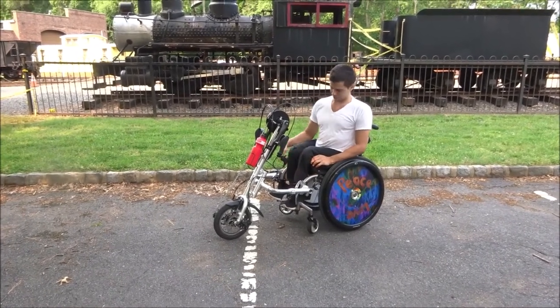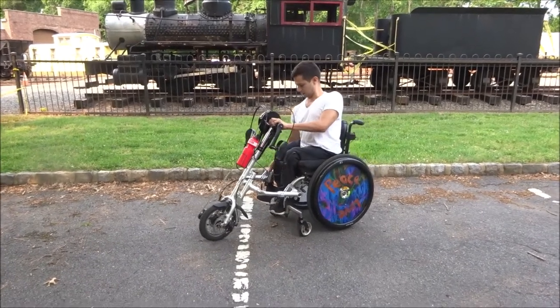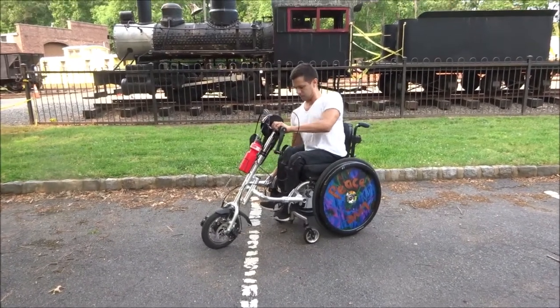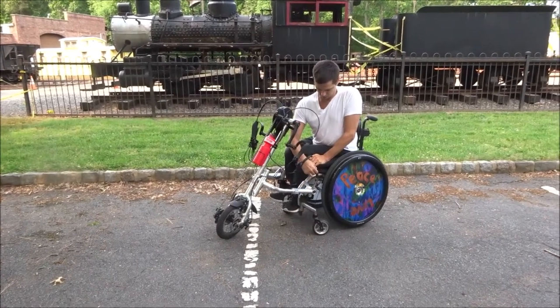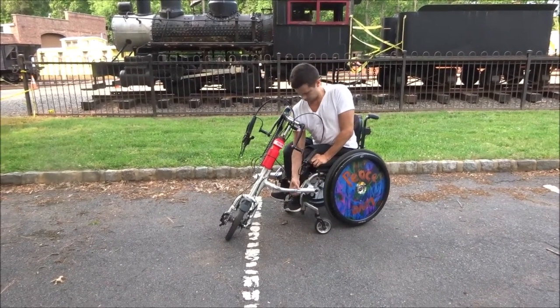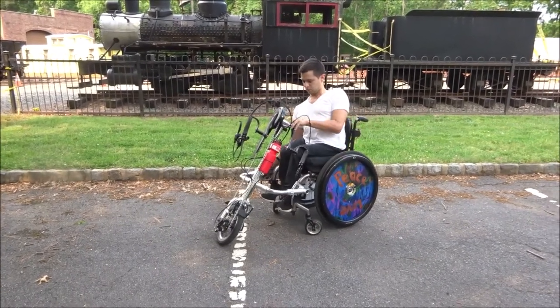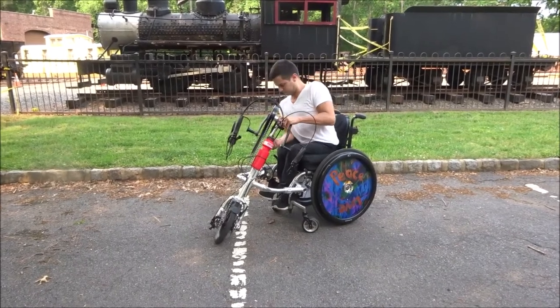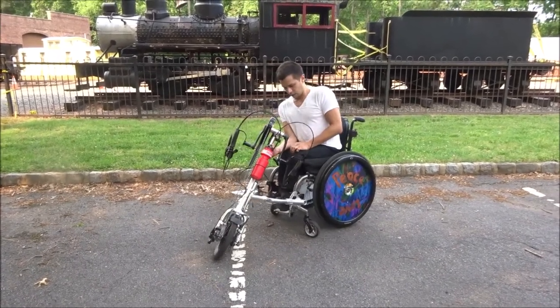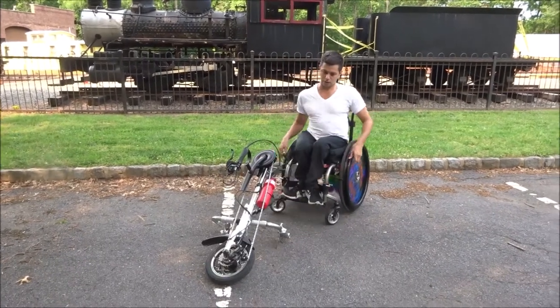There's these levers right here, and it's a little bit tricky if you're not really used to it. There we go — there's one side — okay, there we go, I got it off.